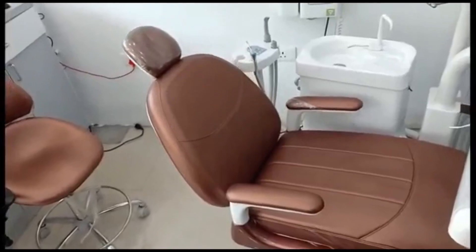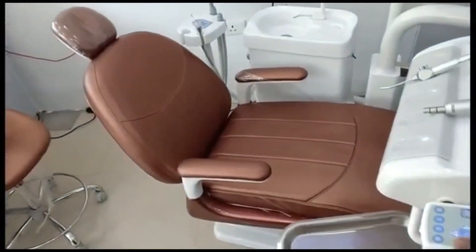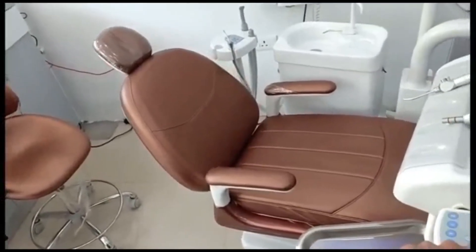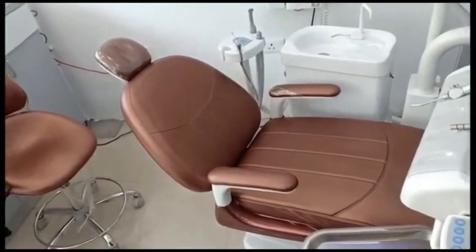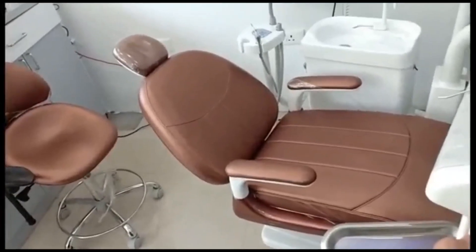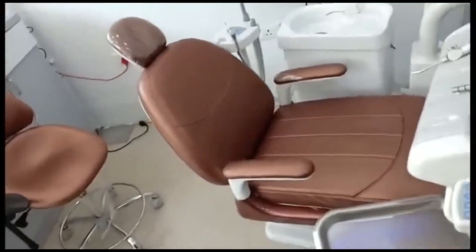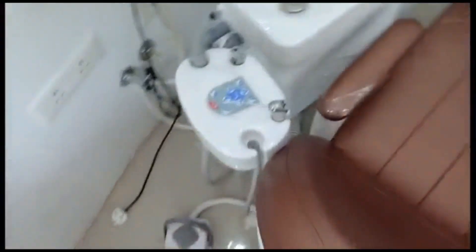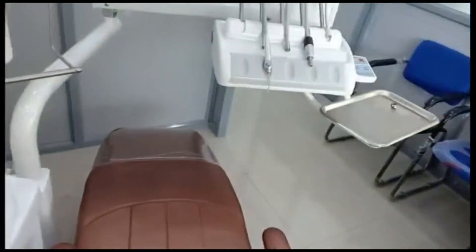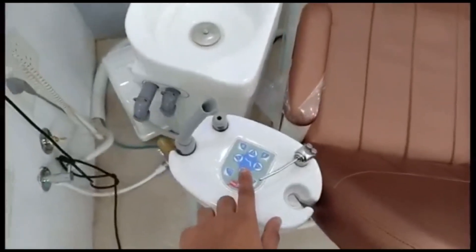This control is for the backrest, which can be put in various positions. Sometimes the dentist may need a more supine — lying — position for treating the upper teeth, and even for the lower teeth you may want an upright position. The same control can be applied from here as well. We have a control panel here too, for when the patient needs adjustment immediately during the procedure.